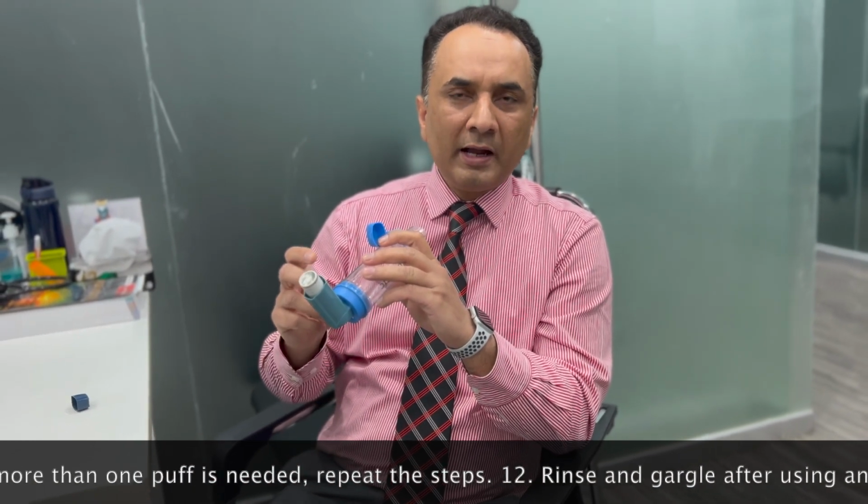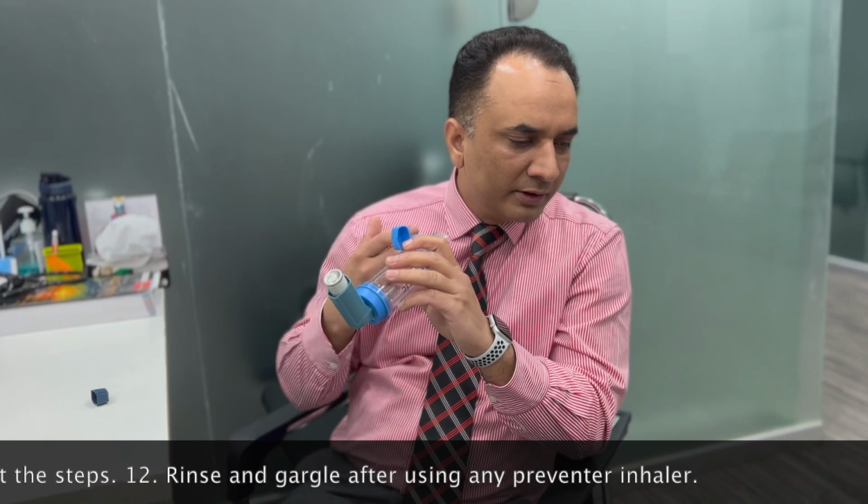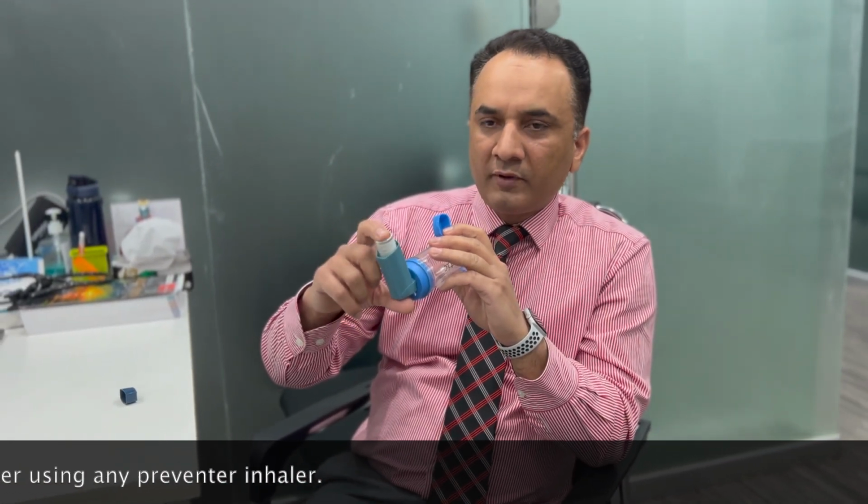And before doing that, you need to breathe out maximally away from the spacer, then put it in the mouth, squirt one puff of the medication, and then breathe in as long as you can and hold your breath at the end for at least 5 to 10 seconds, and then you can breathe out afterwards. I'm now going to demonstrate.